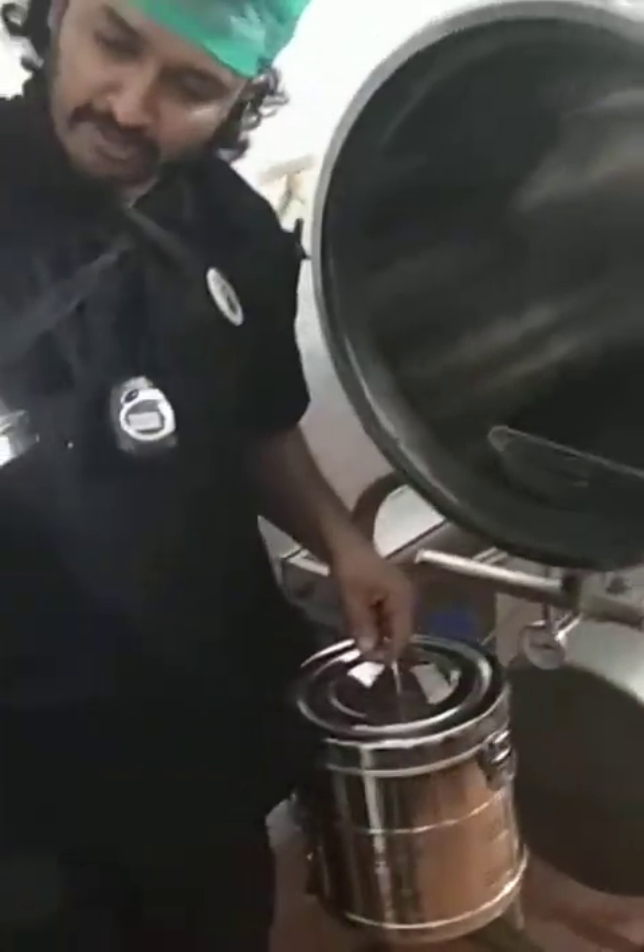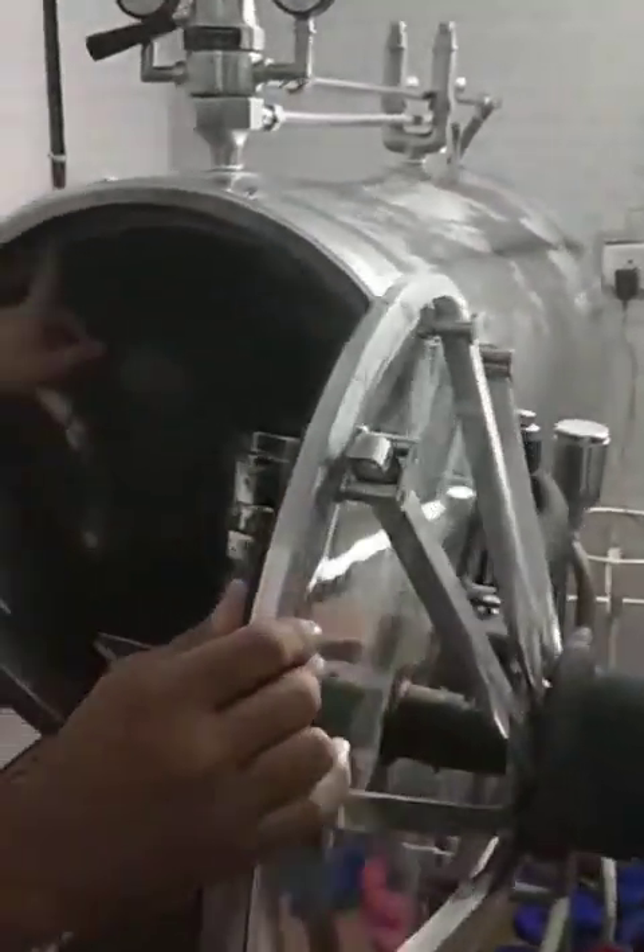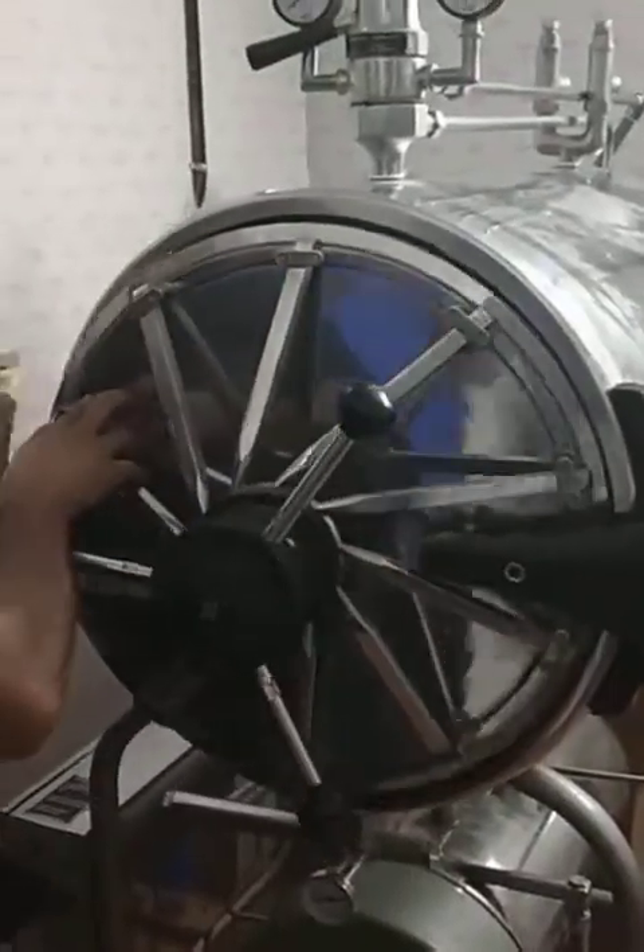I am going to keep my equipment — my sets — over here. They have been labelled and packed. Now I have the vents also open. I have kept one inside here and one inside here. Now I close the lid. If you see carefully, there is a high-quality gasket over here, and this is a stainless steel equipment.